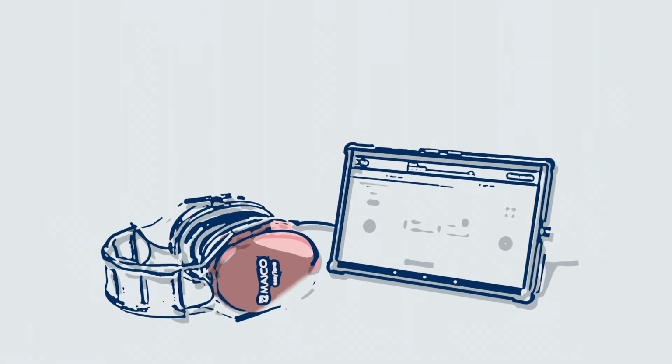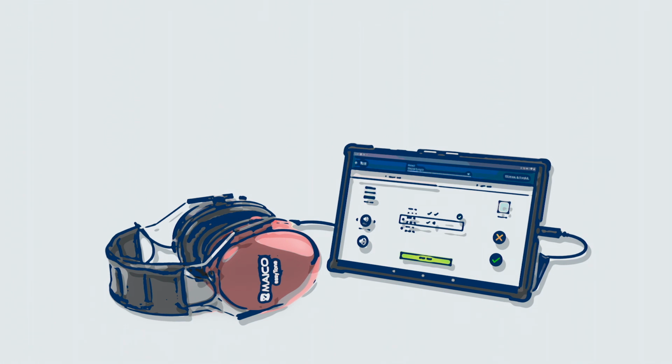This completes this tutorial on Android device setup. Please continue through the tutorial series for additional easyTone instruction.